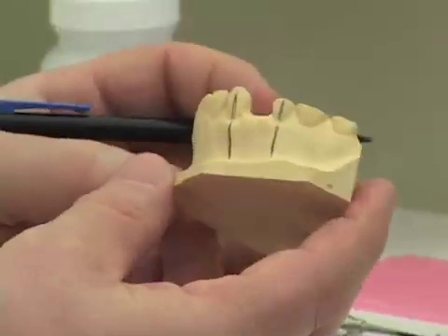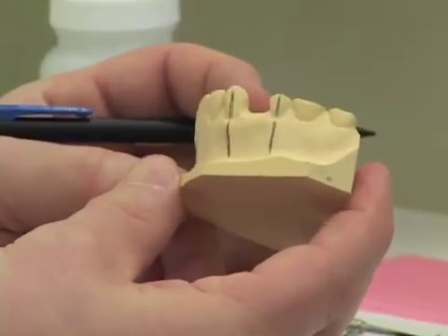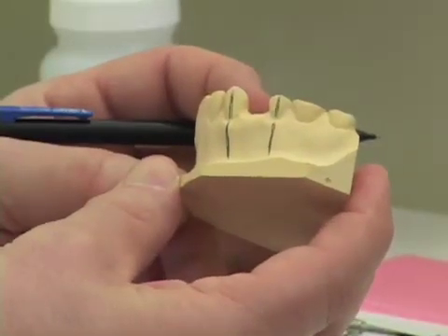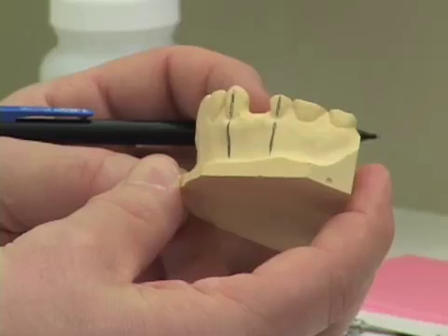Now in an actual patient, I will always be verifying the angulation of these roots with a periapical radiograph.